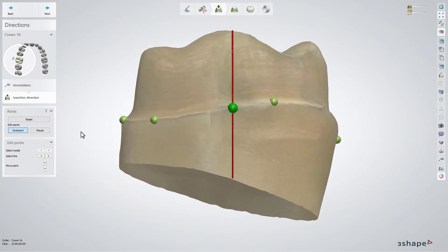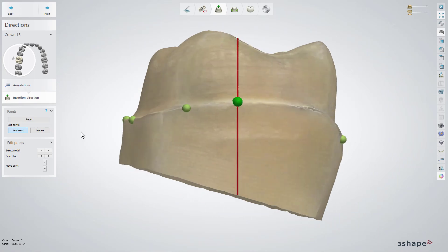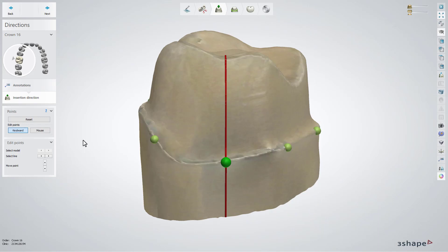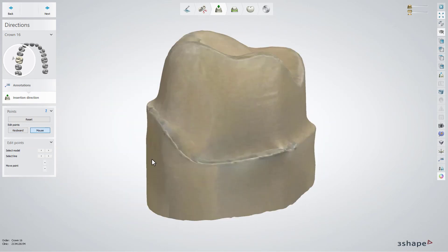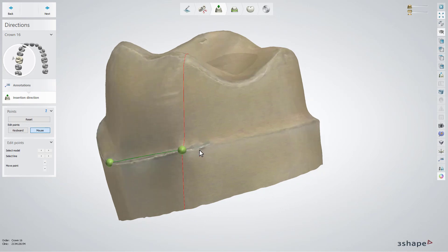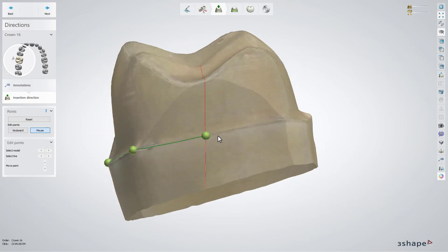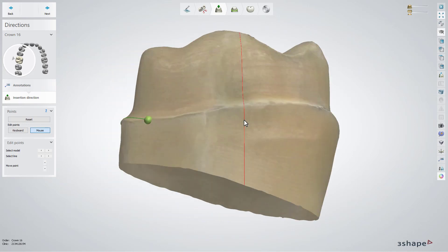Indicating the margin line can be done using a keyboard or a mouse. When the keyboard is chosen, you can edit points using the arrow buttons on the keyboard or the buttons from the Edit Points window. If you choose to use a mouse, place the points with the left mouse button until a full circle has been created.